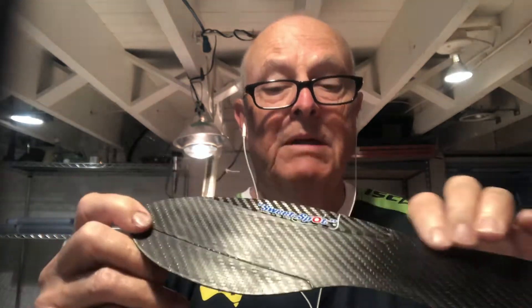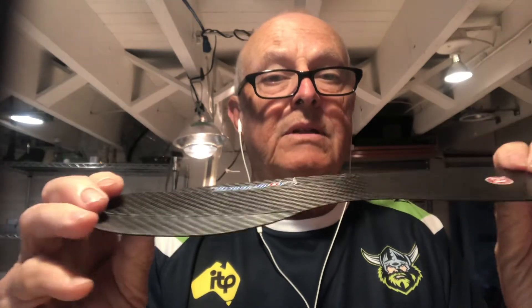The player has a 5th Met Fracture, so I put the sweet spot right here under the 5th Met Fracture. As he heals, he's just coming out of a boot. Stiff flex design, so it's flexible in the midfoot so as not to restrict ankle motion.